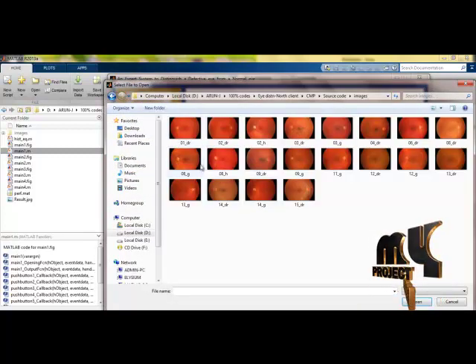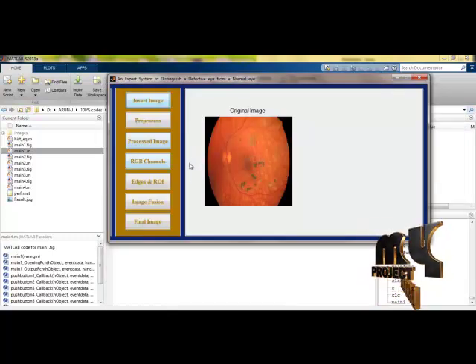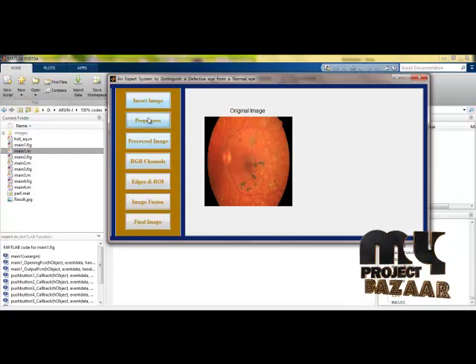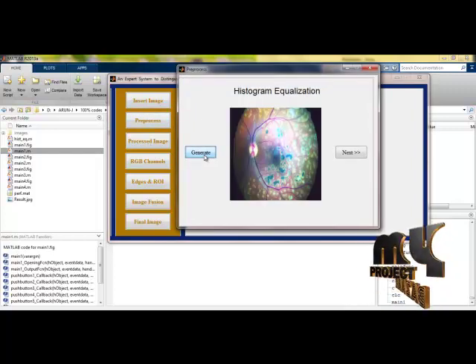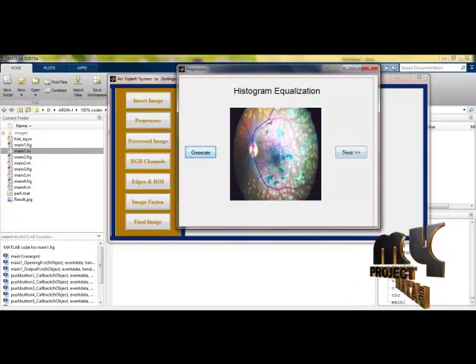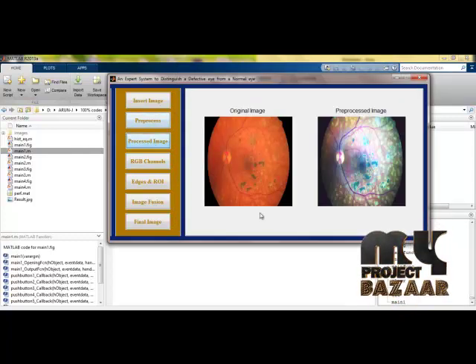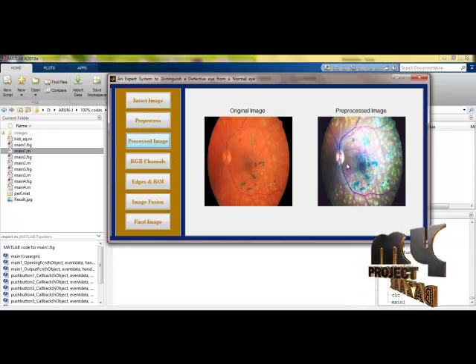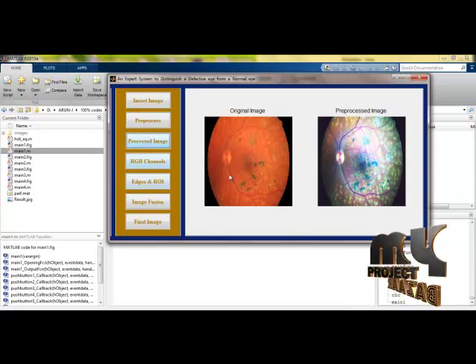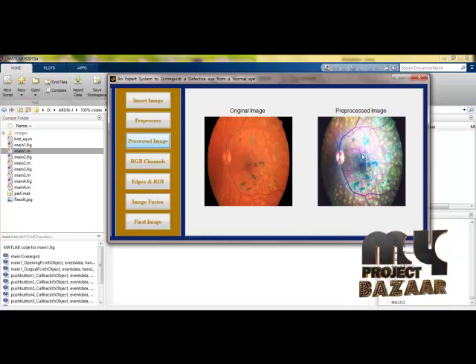From the database of images, I am selecting an image. The selected image is shown here in the axis panel. Now I am doing preprocessing — as we already discussed, I am applying histogram equalization. The processed image will be displayed adjacent to the main panel so we can compare the original image with the processed image. The original remains on the left while the processed image is updated stage by stage on the right.